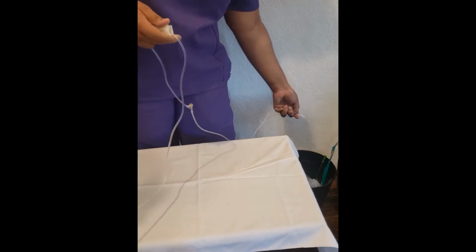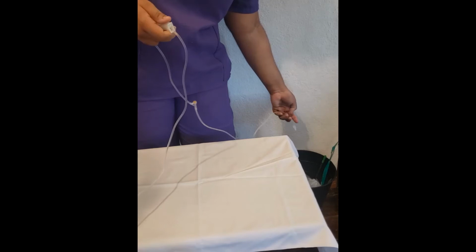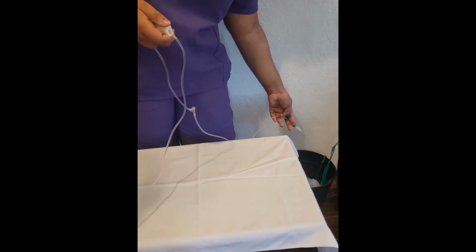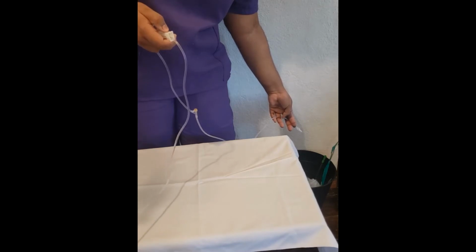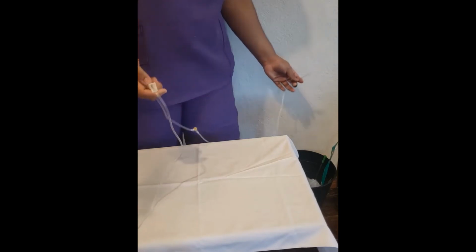The term prime means to make ready, but in common use, it refers to the flushing of the tubing to remove air. Air bubbles smaller than 0.5 ml usually don't cause problems in peripheral lines. For caps with air vents, don't remove the cap when priming the tubing. The flow of solution through the tubing will cease when the cap is moist with 1 drop of solution.